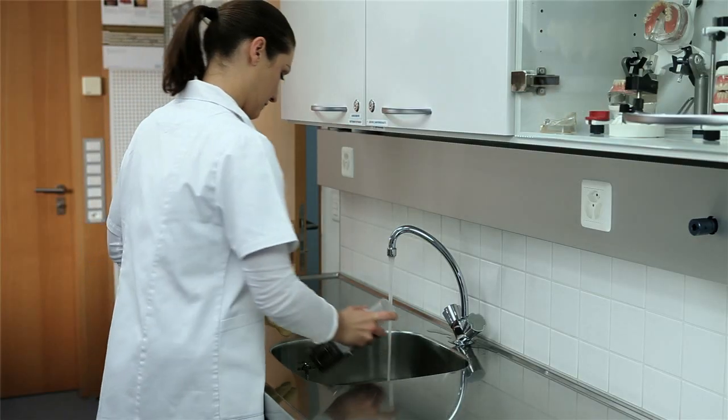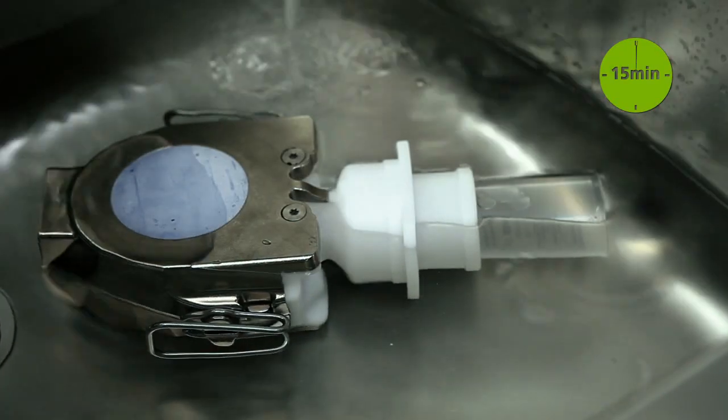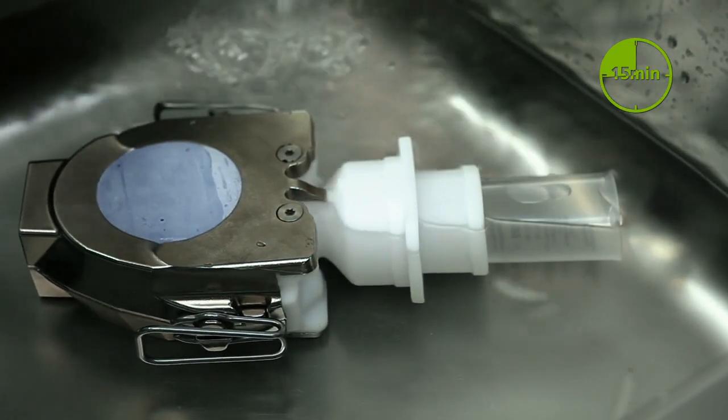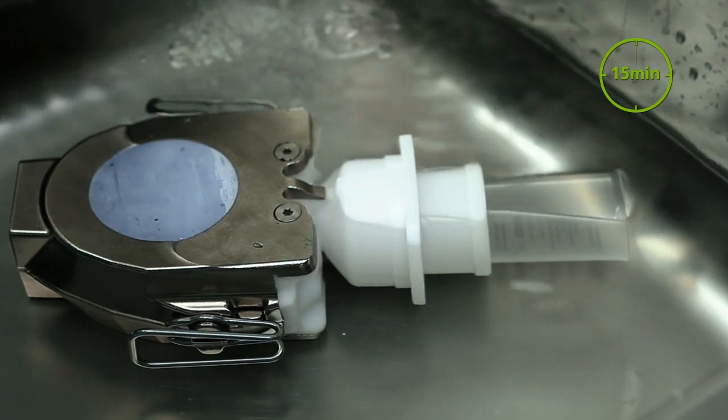Cool the flask under cold running water for at least 15 minutes. If the flask is opened too soon, deformation of the dentures may occur.